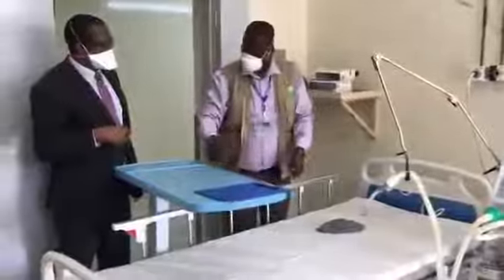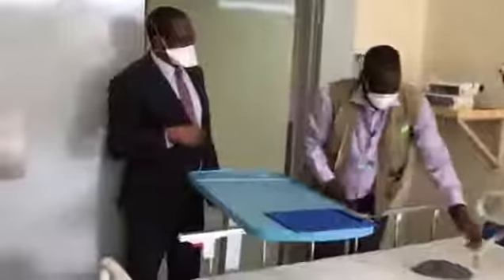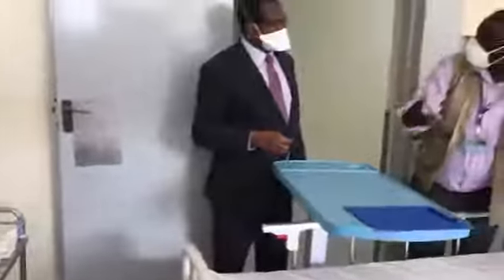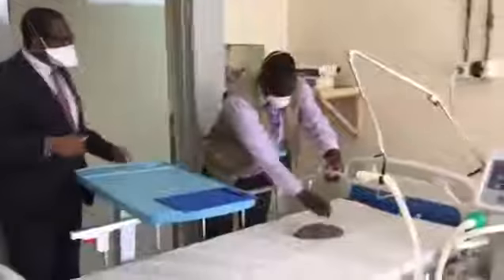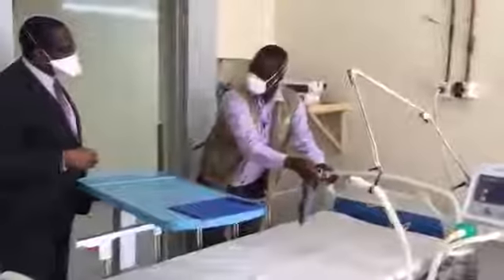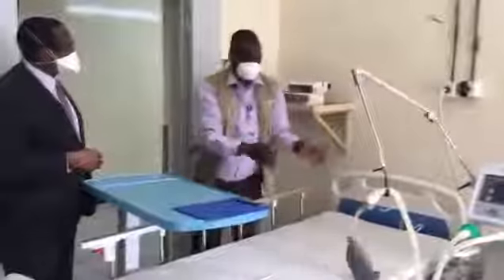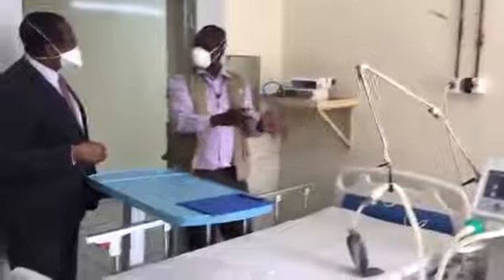Then we connect this tube. Oxygen goes very straight into the patient — the amount that is mentioned. You have to decide how much to give, how much not to give.